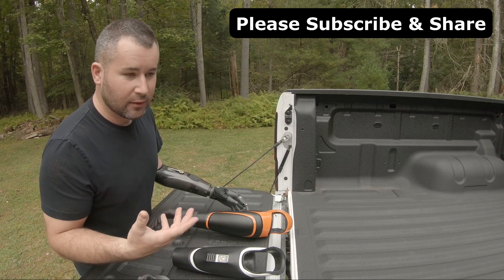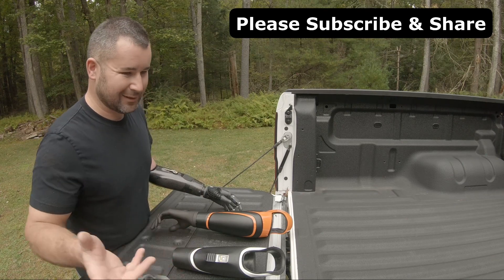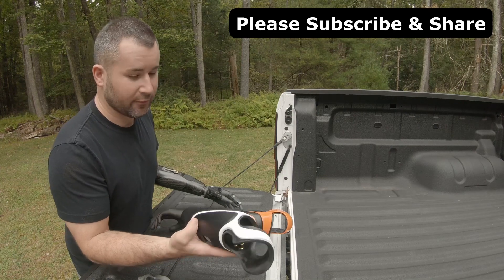So if you're working indoors at a desk, or you're a teacher or whatever it is, you're not going to hurt this. It's going to stay new for a long time.